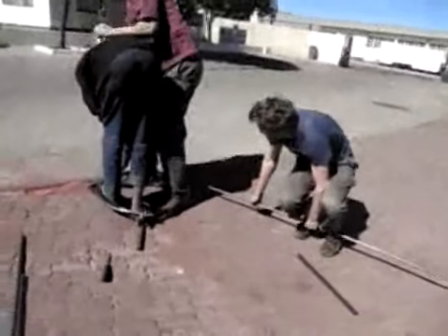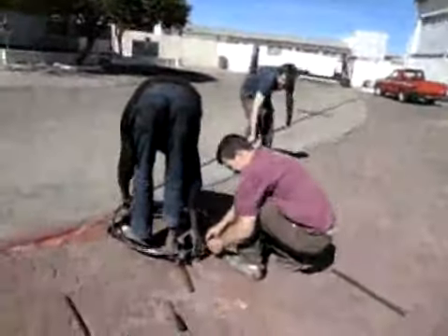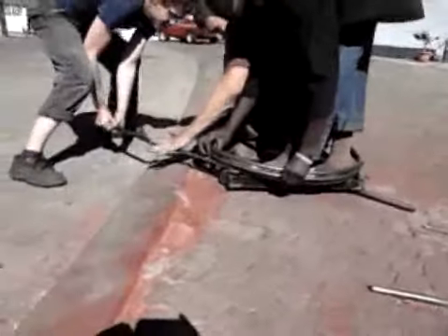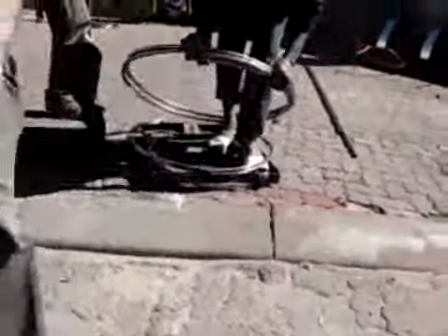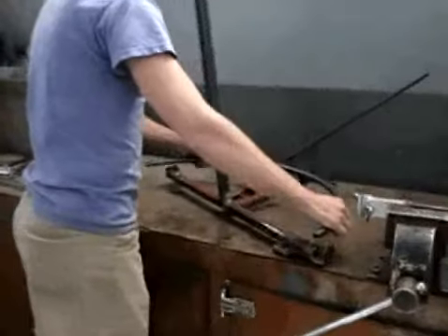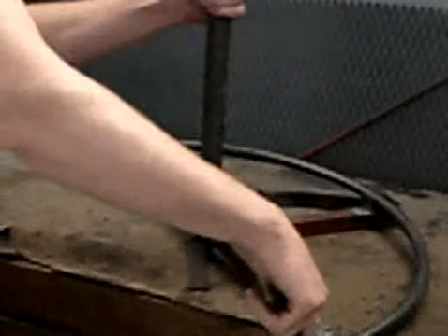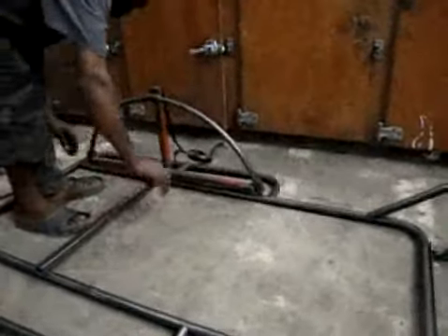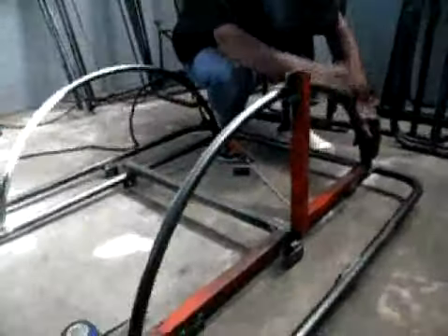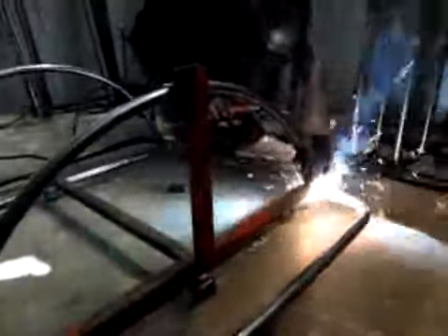Bend the fender tube from 19mm by 1.6mm round tubing using a jig made from a bent bicycle rim or plywood. This bending jig produces 5 fenders, enough for 2.5 ambulances, from one 6m long tube. Bend the tube in slow, consistent motions and use a cheater bar at the end of the tube to get enough leverage. The fender cutting and locating fixture can be used to cut the fenders to the same shape each time and locate them on the ambulance frame on center and vertically. Although the fenders can be aligned slightly after welding to be parallel and plumb to the frame, it is much better to line them before welding to avoid torquing the frame. Remove the fixture from the frame and finish welding the inside of the joints.